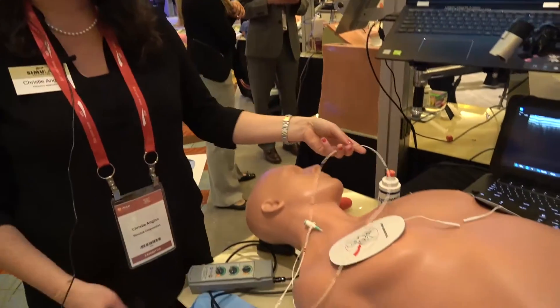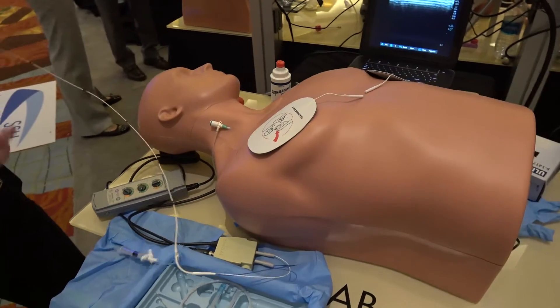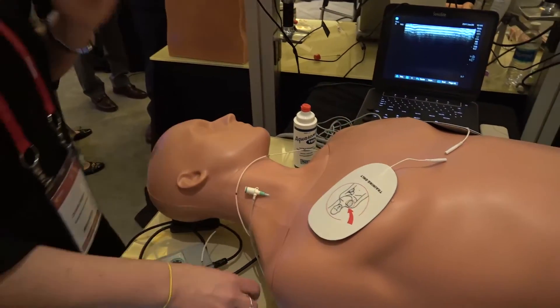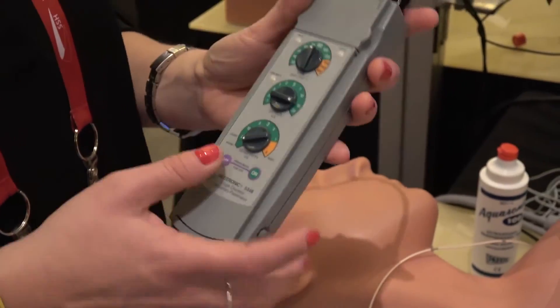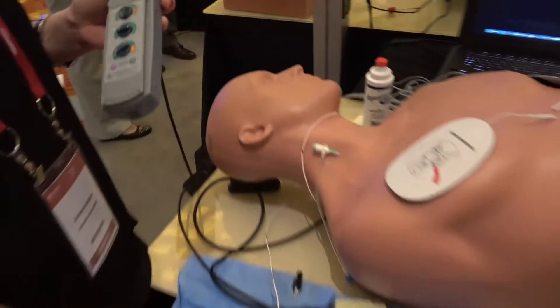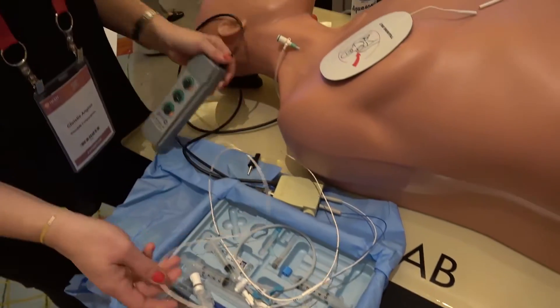Welcome to Simulab IMSH 2017. We have our Pacerman system here that we've introduced this year for temporary transvenous pacing. I'm going to show you the main features and functionality of it. The Pacerman system will work with any of your own pacing generators, so your learners can learn how to adjust the dials, work with their own kit, orient themselves with all the components, and it all works clinically with our simulator.